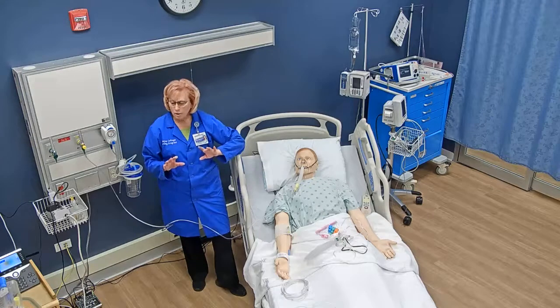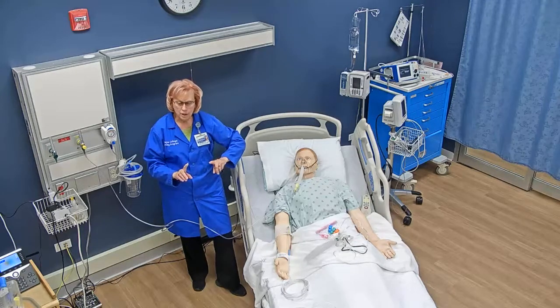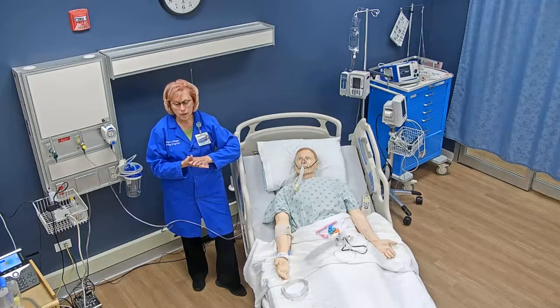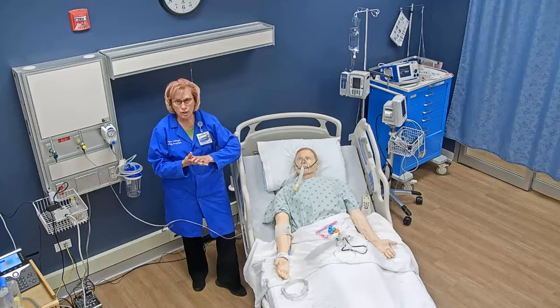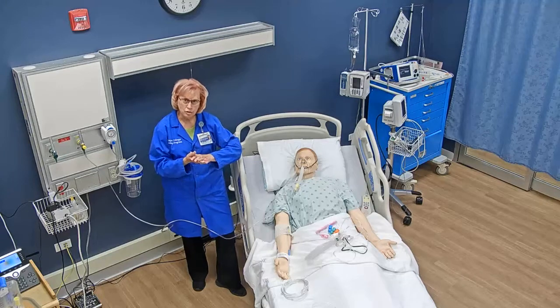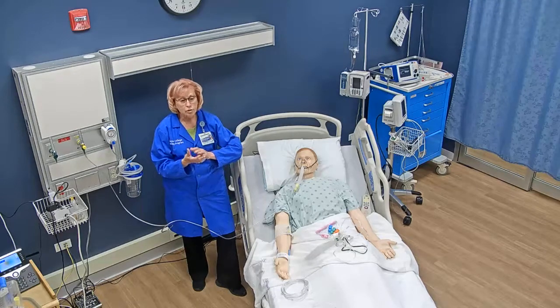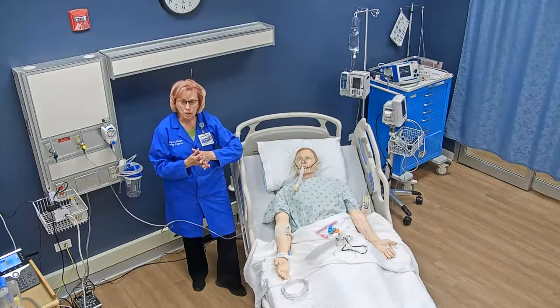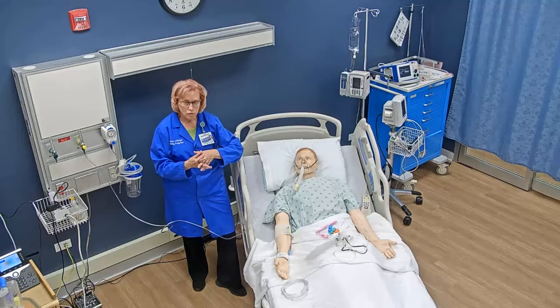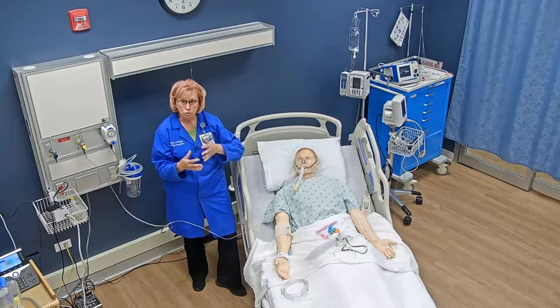That covers all of our oxygen delivery devices. Remember that your nasal cannula is your first line of therapy. Every acute care hospital in this area has a standing protocol that the nurse can administer oxygen without calling the doctor for an order. If you check your patient and their oxygen saturation is low, you can get the nasal cannula, put it on the patient, and adjust the flow rate until the oxygen saturation is 92% or better. If the saturation is still low even with a nasal cannula, you'll need to call the physician and get additional orders.